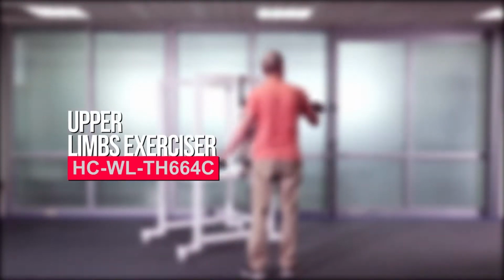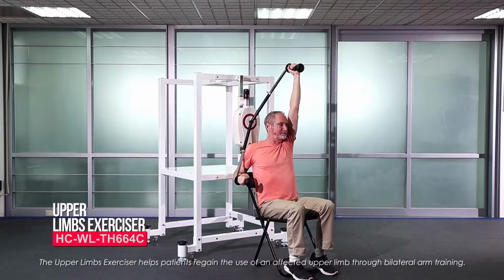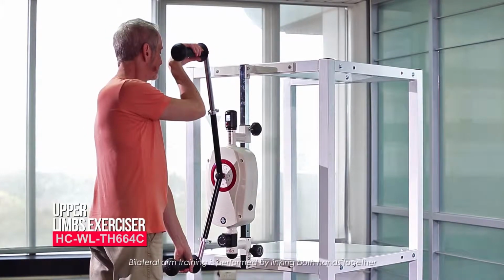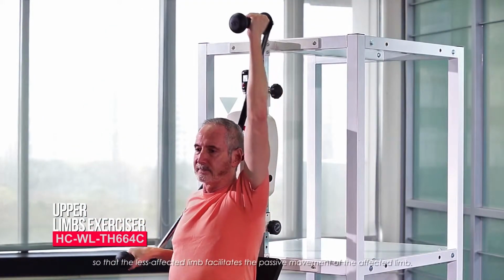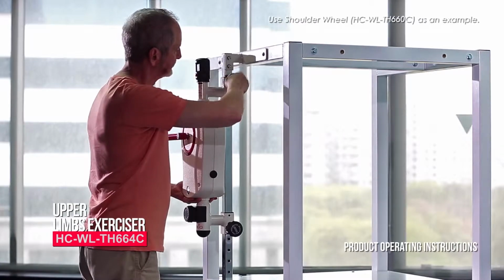Upper limbs exerciser. The upper limbs exerciser helps patients regain the use of an affected upper limb through bilateral arm training. Bilateral arm training is performed by linking both hands together so that the less affected limb facilitates the passive movement of the affected limb. Product operating instructions.